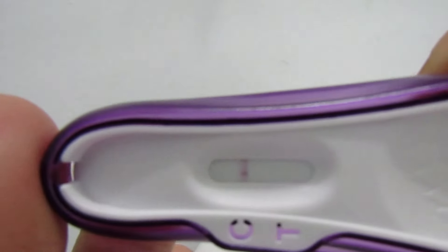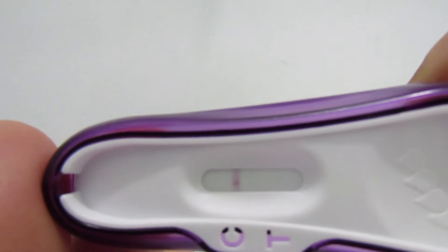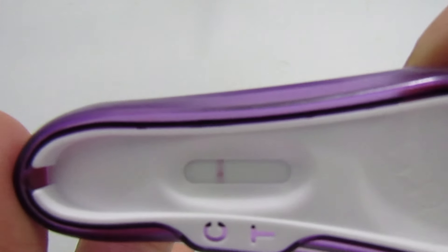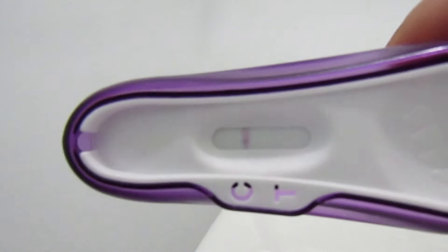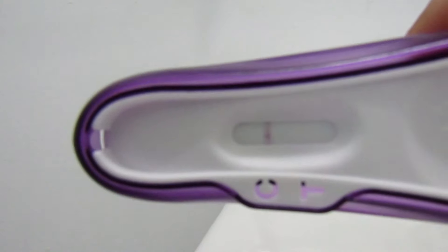I'm pretty sure that is negative, so I'm just going to go with negative, and then I think if I haven't got AF yet, I'm going to skip another day and come back. So, I would be 13 DPO, that would be one day before AF.